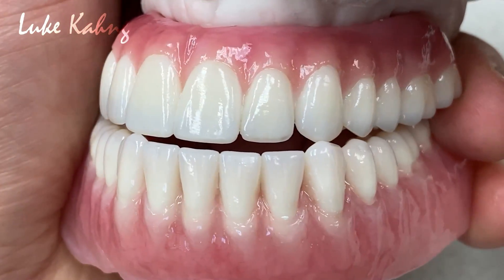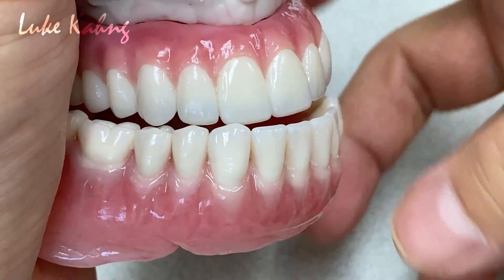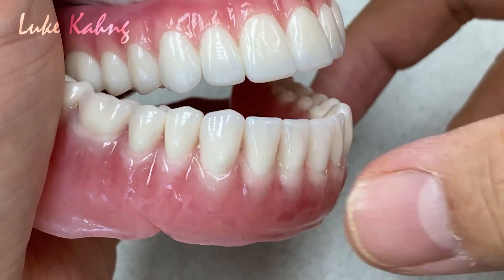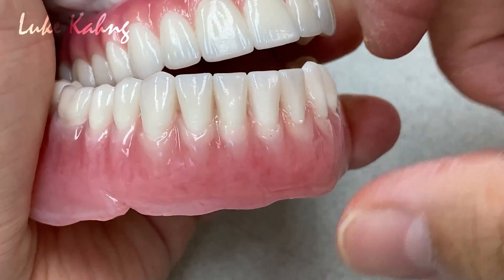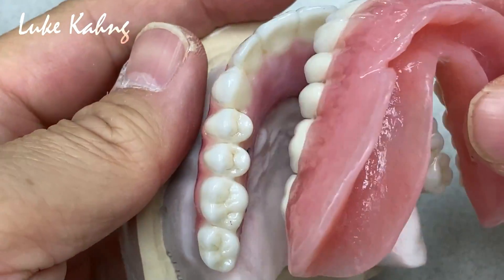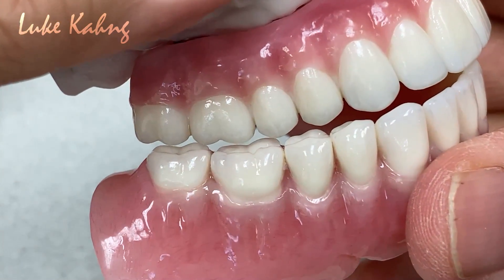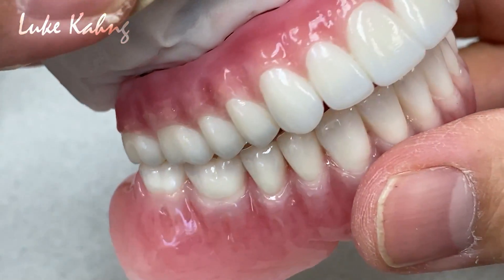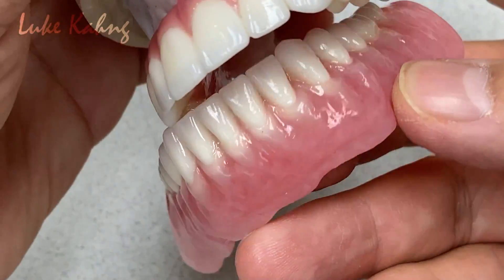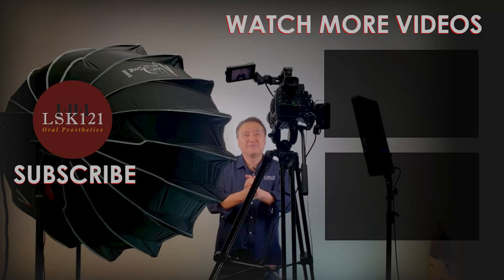This is the final — this is what it looks like. The lower denture, as you saw, has so many colors intense. We apply together and we are trying to mimic with upper zirconia. The lower is regular dentures but we give them their characteristics. So now it's matching really good. This is how you made it — from the translucency before with the kind of blue. We are going to do just like this: open the translucency, same way, very simple. And we can finish the final. Thank you.